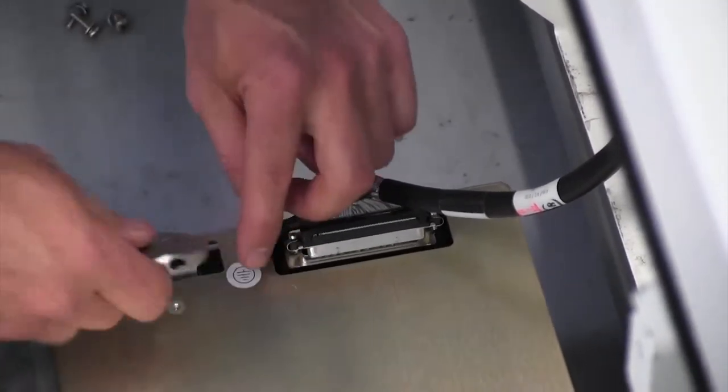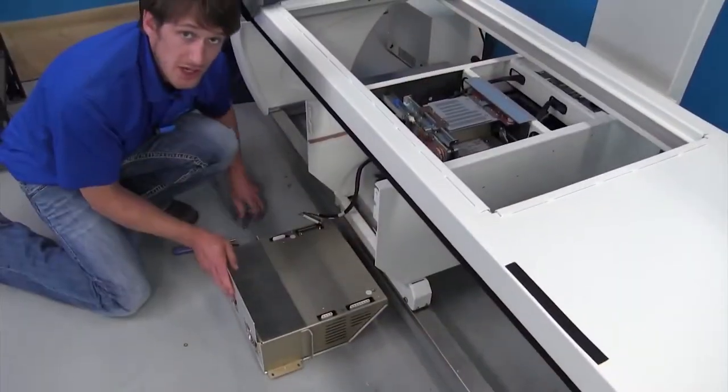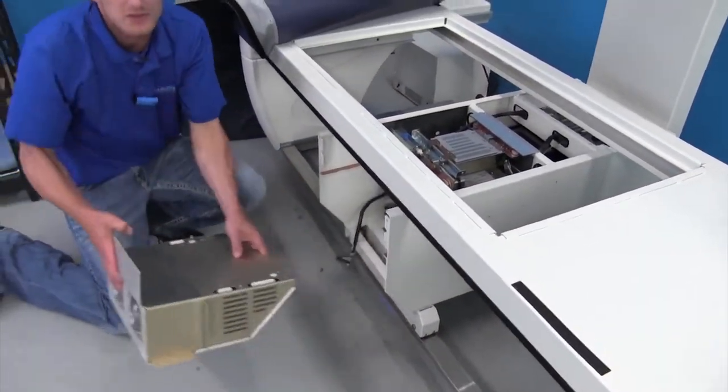Also a ground screw here that needs to be taken off. Once your XRC is disassembled, take and set aside.